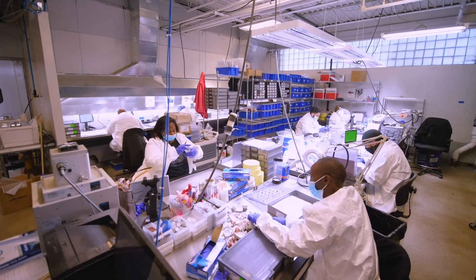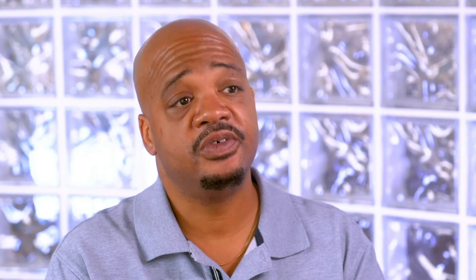It is tricky. It is one of the hardest coatings that we do. So it is a challenge — you have to know what you're doing to get it right.